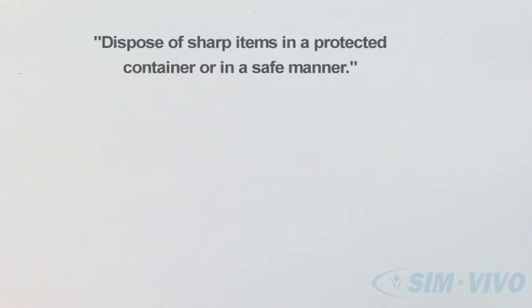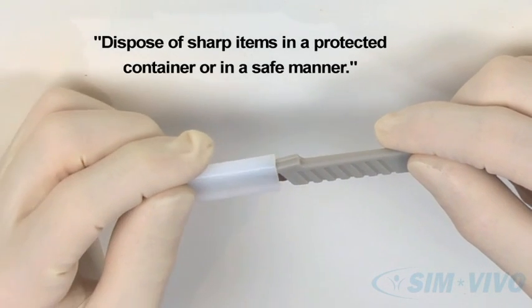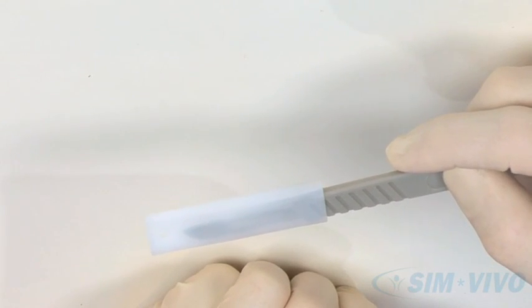One last cautionary comment. The scalpels and needles in this module can be dangerous if the sharp edges are left exposed. Always place the cap back on the scalpel carefully after its use.